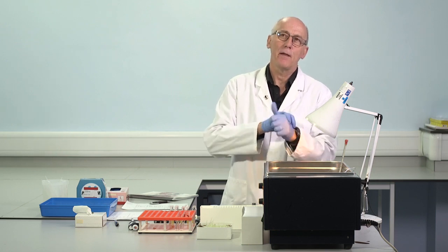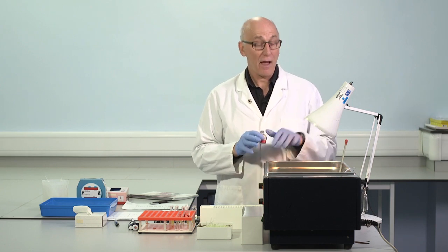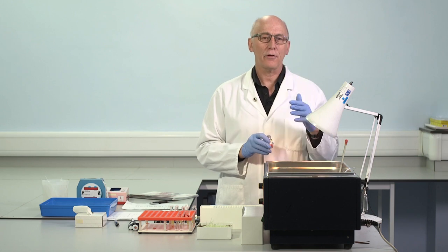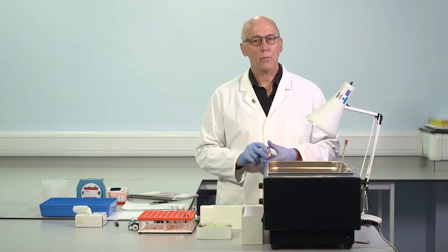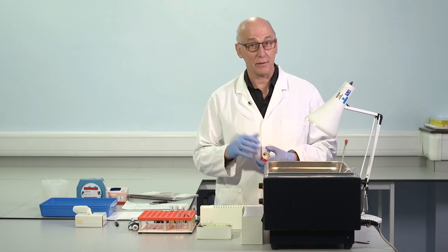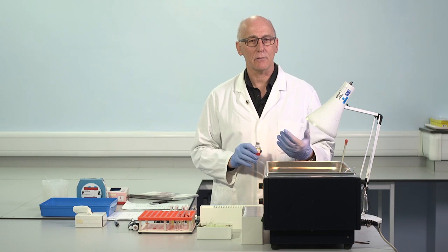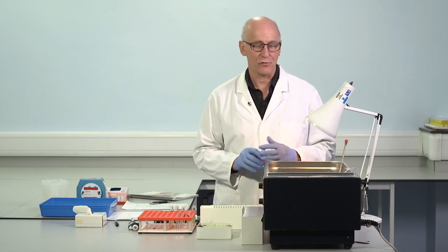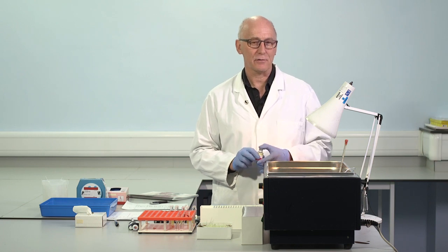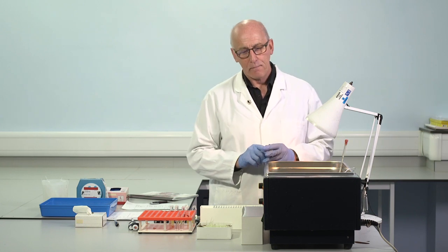bath to be warming. And of course, when we move a reagent from a primary to a secondary vial, either in the water bath as we're now doing, or on an autoanalyzer, we have to pay attention to the fact that we may have altered the stability conditions. So we need to use the reagent during its period of stability in its secondary vial. And for an automated system, we should pay careful attention to the recommendations of the manufacturer. Just now we're working in a water bath.